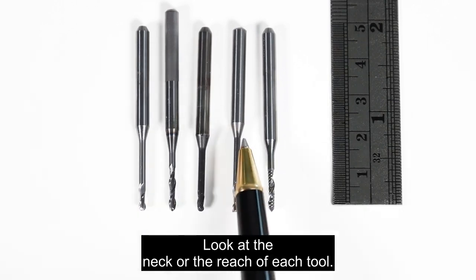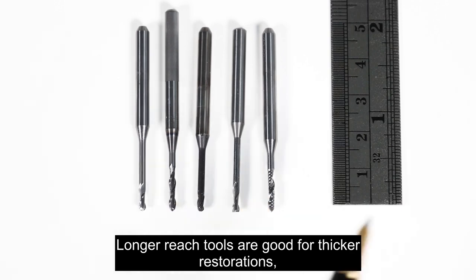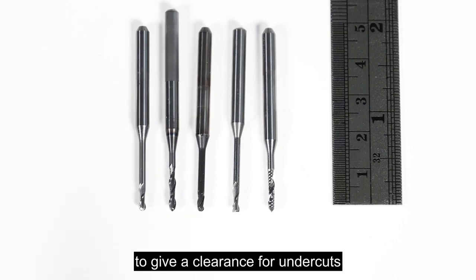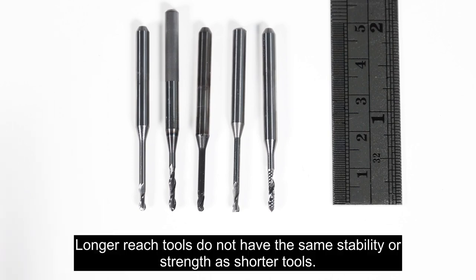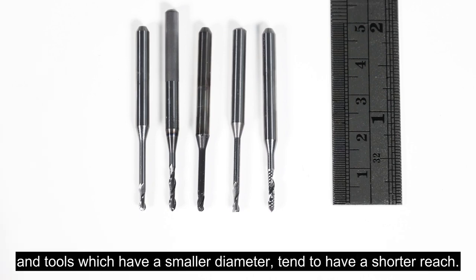Look at the neck or the reach of each tool. Longer reach tools are good for thicker restorations, allowing the tool to reach deeper into cavities or to give a clearance for undercuts when the 5-axis simultaneous movement angles the material. Longer reach tools do not have the same stability or strength as shorter tools. This is why tools for harder materials and tools which have a smaller diameter tend to have a shorter reach.